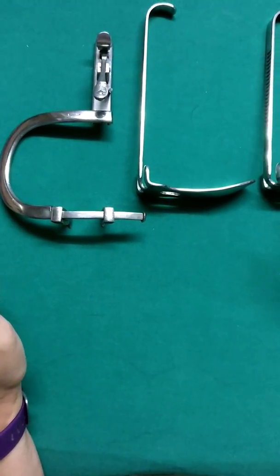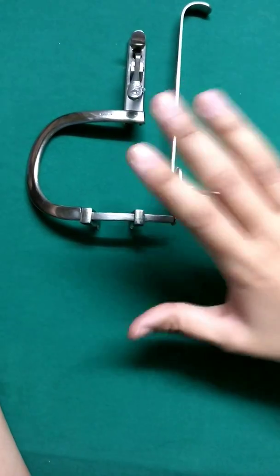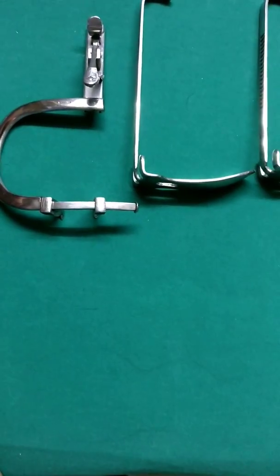This is a mouth gag that is used in case of palate surgeries. This is called an open-ended frame and it is part of a third-generation instrument where detachable tongue blades are present.